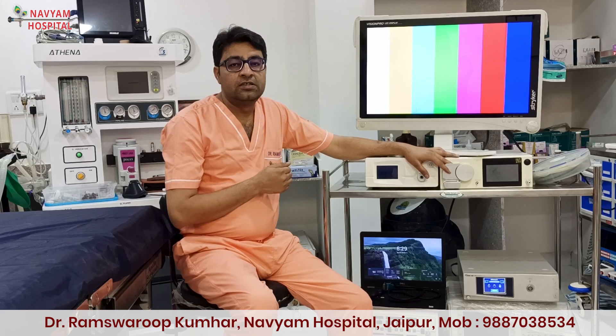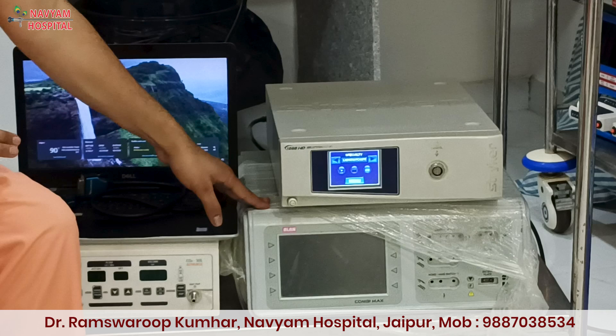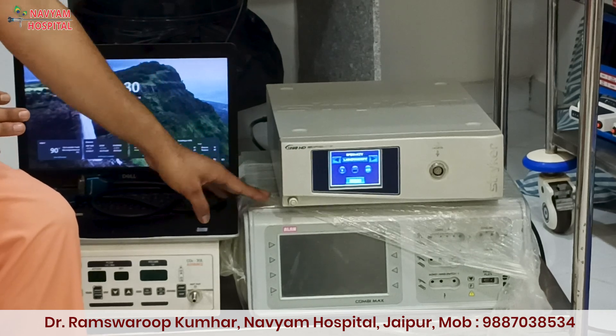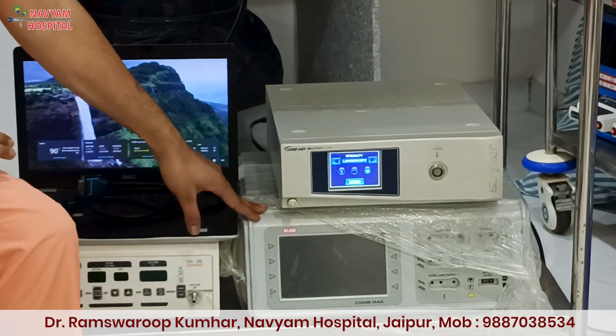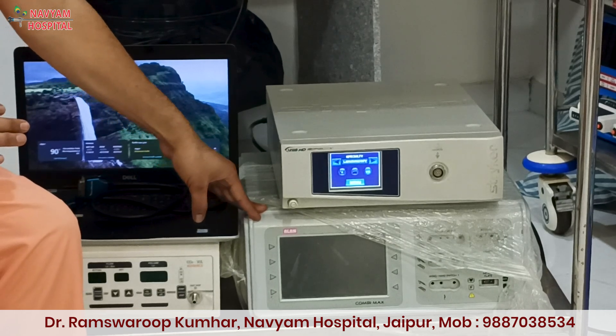For that first year, I used the Maddox pump only, and that was sufficient at the time. Later on, I purchased this machine for 1.5 lakh for the purpose of operative hysteroscopy where constant pressure was required. Along with this, we can also upgrade the electrosurgical unit — just before 2 years back, I upgraded this ESU for saline hysteroscopy and operative hysteroscopy with bipolar resectoscope.